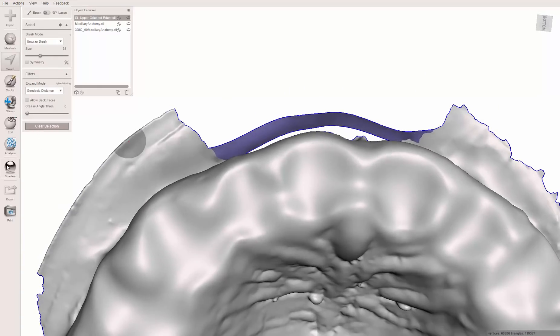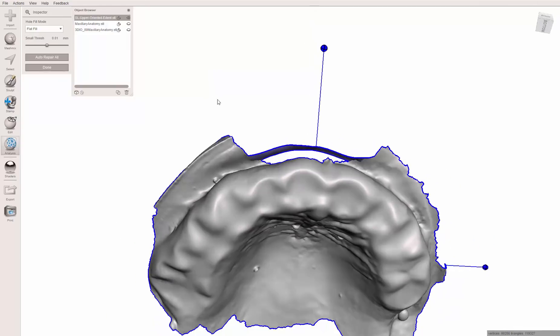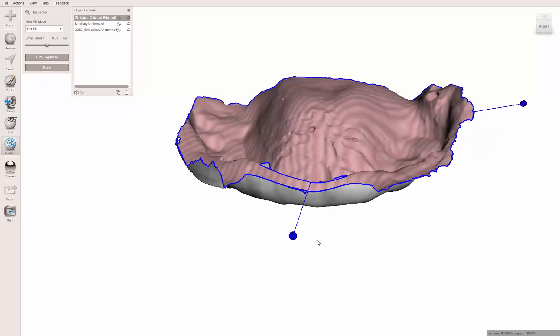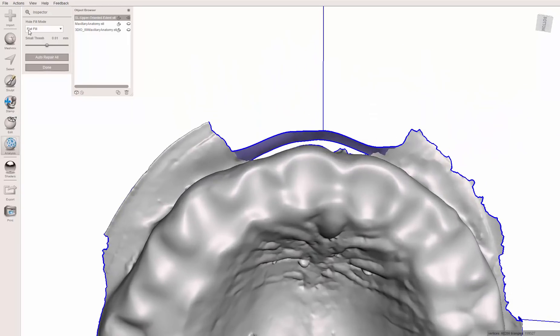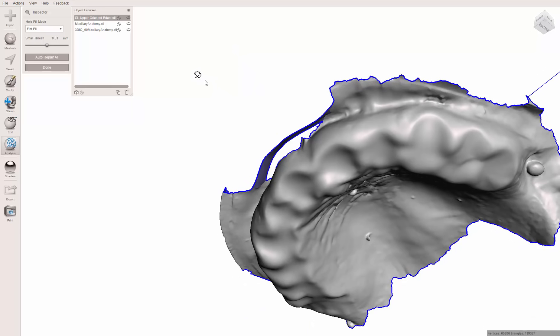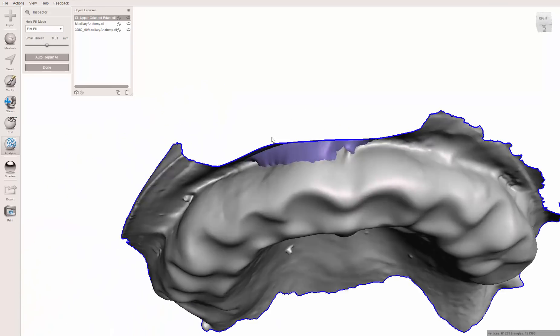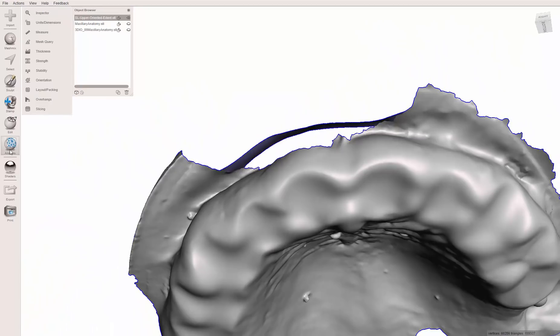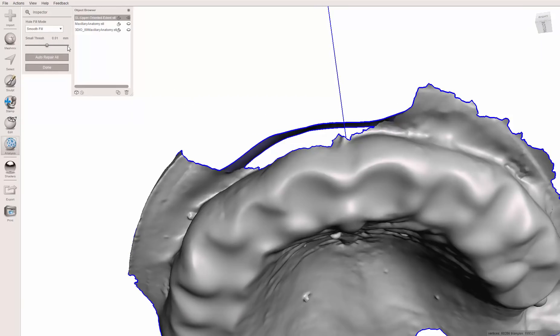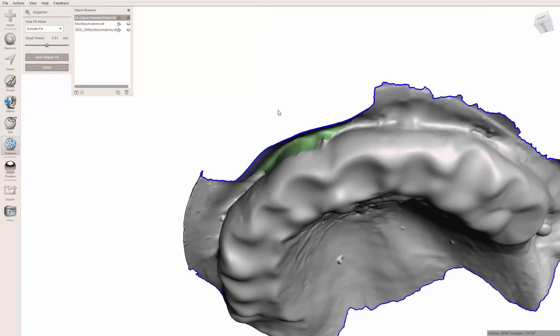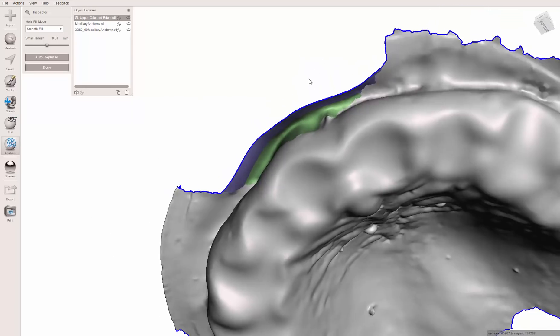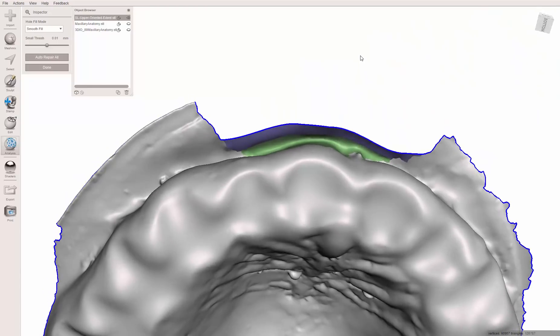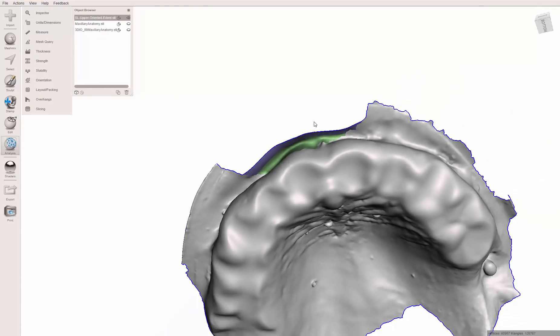And now if I come over to the analysis inspector tool, it finds the hole in the base of the model, which we don't want to close, but it also finds the hole right here. Important thing to note, the default is flat fill. If I hit this little dot right here, it will try to make a flat repair. Which, you know, it's better than nothing, but it's not what I want here. Hit control Z. Instead, analysis inspector, change this to smooth fill. It's going to try to take into account the transition angle. And click on this dot. And now it creates a nice rounded vestibule. Again, is this an accurate depiction of what the real vestibule looks like? No. But is it better than what we had? I would argue yes.